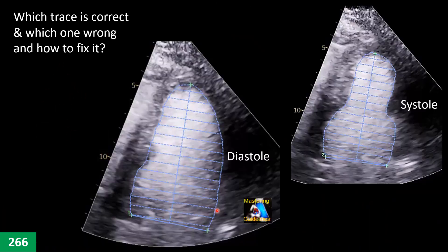Here is a contrast study in diastole and systole. Is the endocardium tracing correct? First, do you think it's correct or not? If you assume diastole is correct, what about the systole — is that correct? If correct, what does the patient have based on these two measurements? If not, what is the correct technique? Where is the correct trace border — on this one or this one?